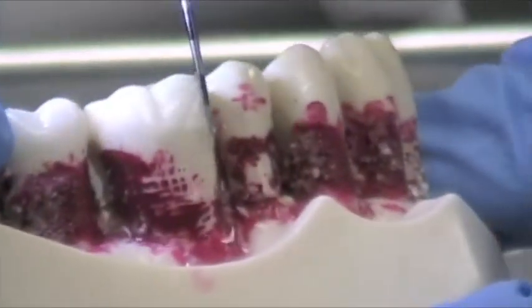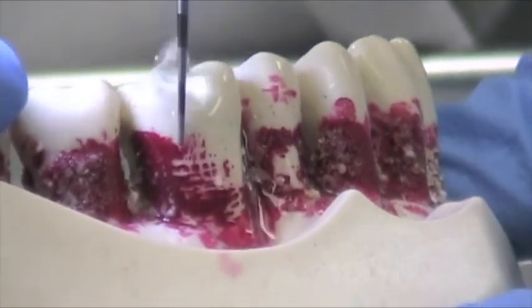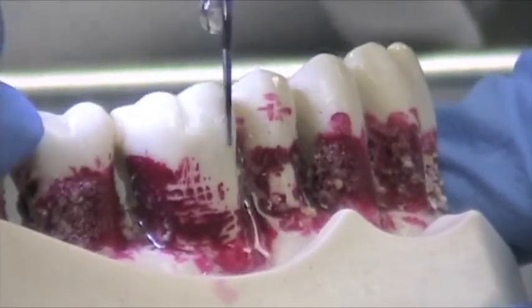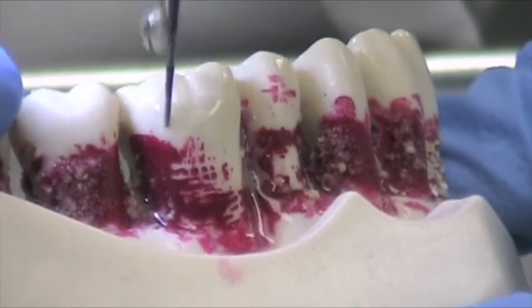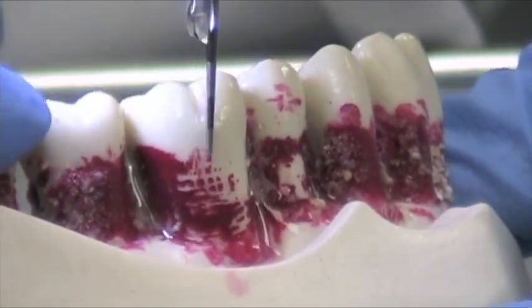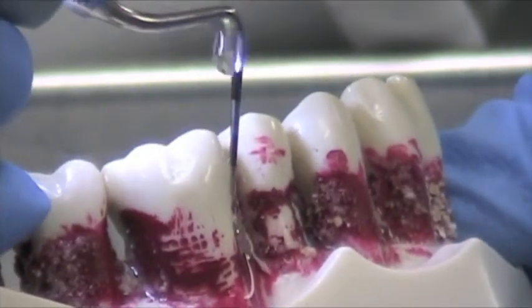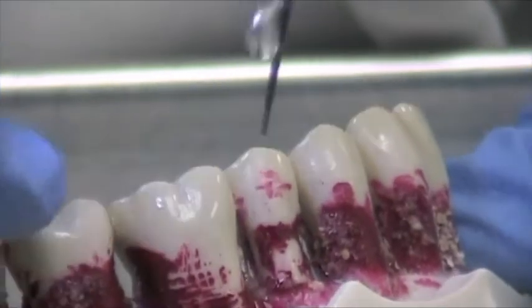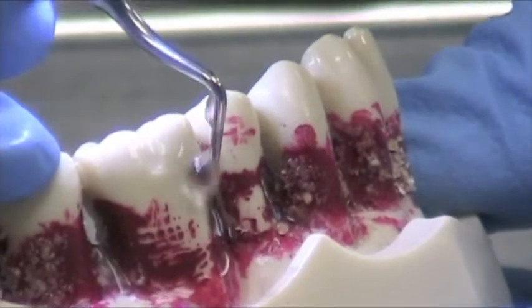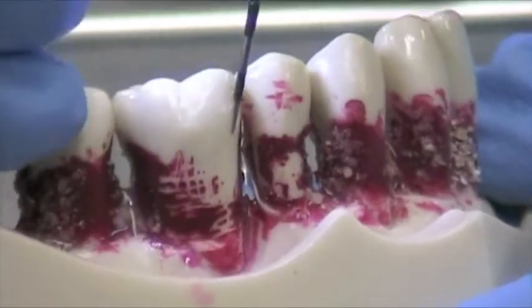The tooth I chose here does not have any red or fake calculus because this is for biofilm debridement. Very, very light sweeping strokes. This is non-bladed, doesn't have any diamond coating — it's not for calculus removal, it's for biofilm disruption. When you go into the interproximal areas, you can turn your angle, drop by drop irrigation, again using a fulcrum.